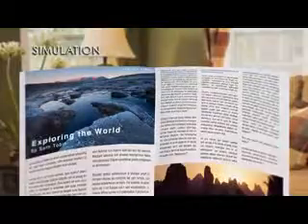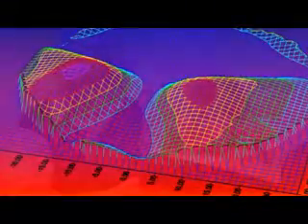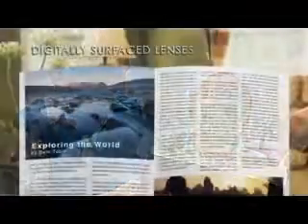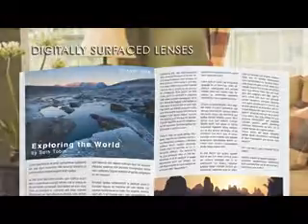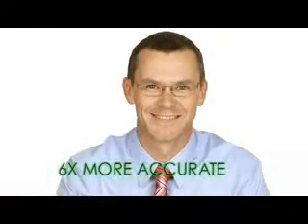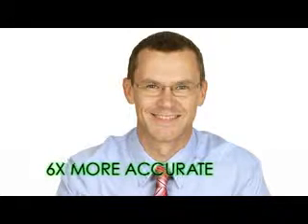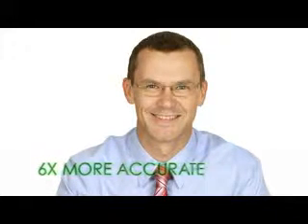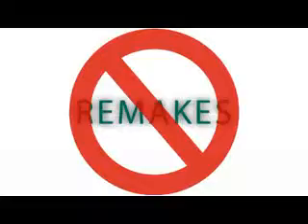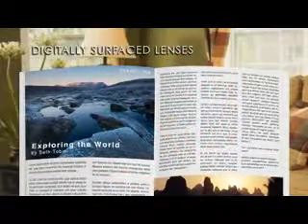As an industry, we have been providing compromised optics to our patients due to previous technology limitations. Digitally surfaced lenses are designed to correct, as much as optically possible, these compromises, resulting in significantly improved vision. Digitally surfaced lens technology offers your patients six times more accurate lenses, up to 1-100ths of a diopter in accuracy, and more lens design options. This means fewer remakes, fewer returns, greater patient satisfaction, and clearer vision for your patients.